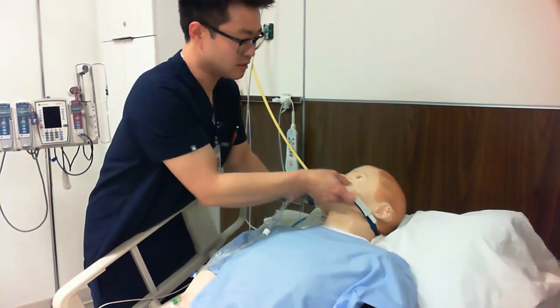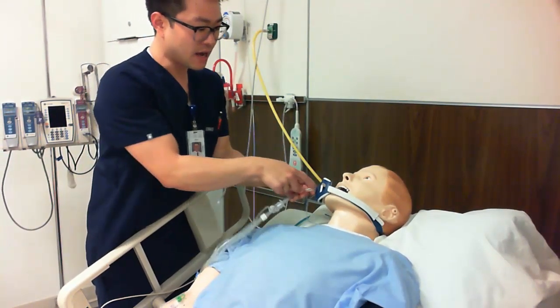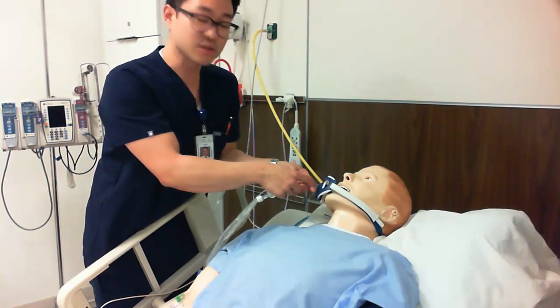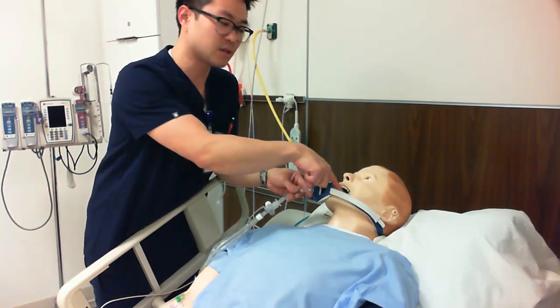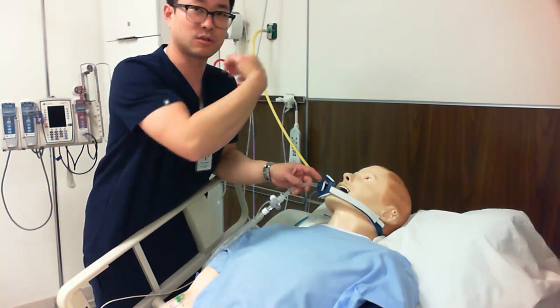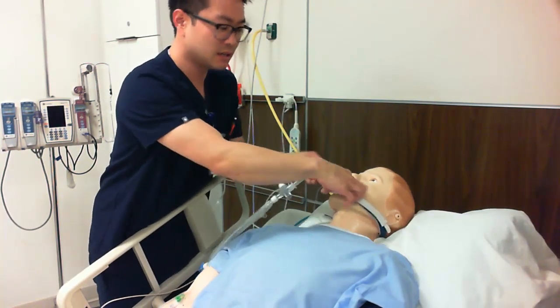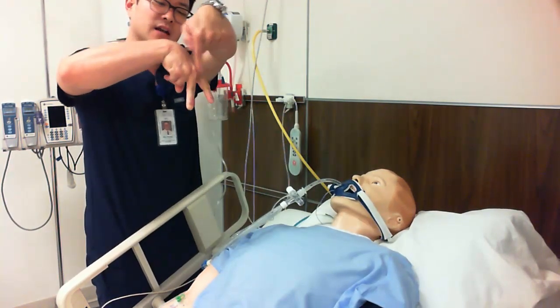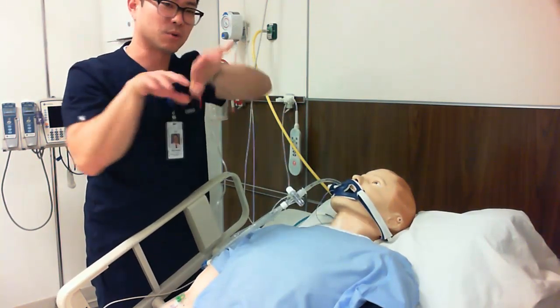As you can see, this device is out. However, if I say that it's measuring 20 at this anchoring device, it still measures 20 at this anchoring device, but it's not 20 inside the patient's throat, right? So when it was in the patient, it was in the right position, right above the carina, and we were getting full ventilation on both sides of our lungs.